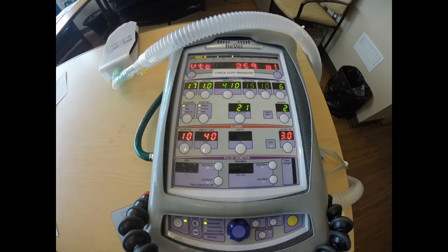For a more detailed discussion about pressure-regulated volume control, you can reference the lecture on the AirLink 2/Lifeline YouTube site, which is ventilator management. And you can also look up in the CareFusion Revell manual. Page 4-5 has some explanation about pressure-regulated volume control.